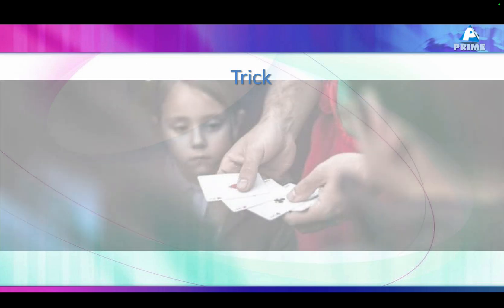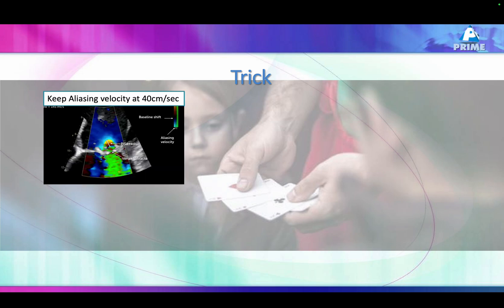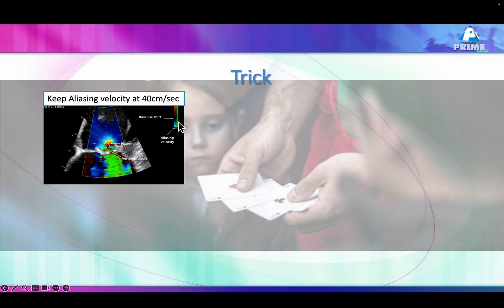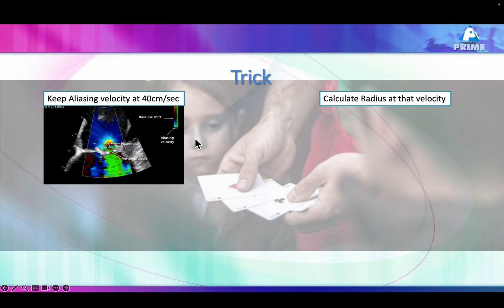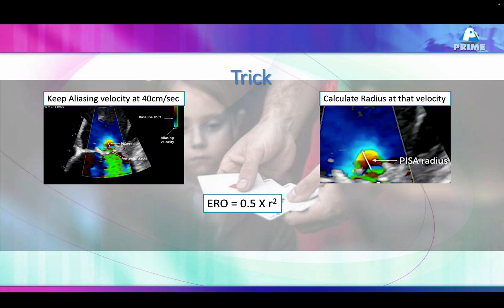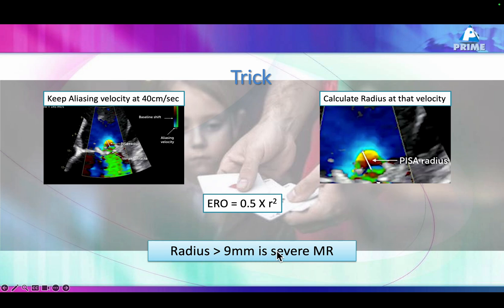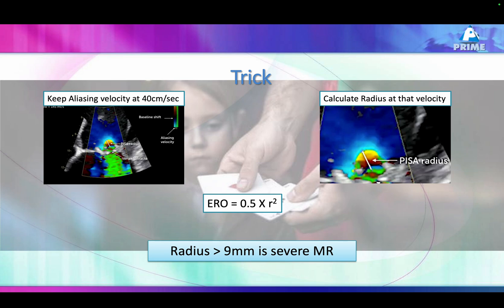Do we have any tricks? Yes. Here's one: just move the baseline down towards the flow until you get a Nyquist velocity of around 40 centimeters per second — somewhere between 38 to 42. At that point, calculate the radius. If the radius is less than 3 mm, this is mild. If it is more than 9 mm, this is severe. In between is moderate. That's the PISA method in an easy, practical way, without all those complex calculations.